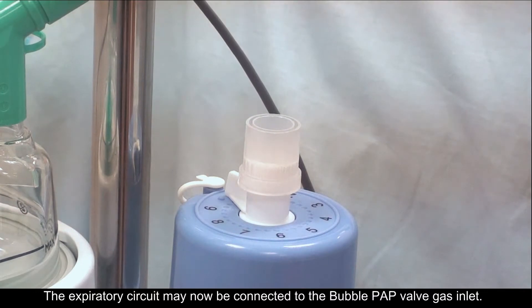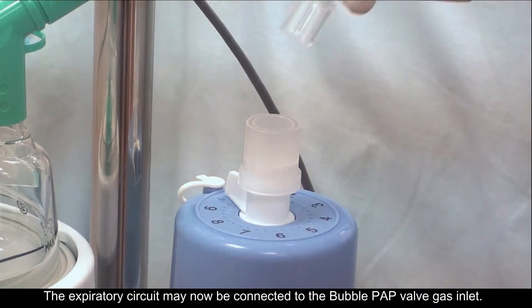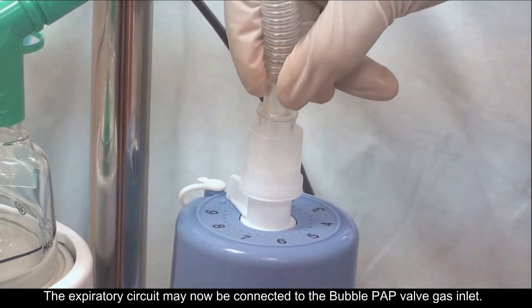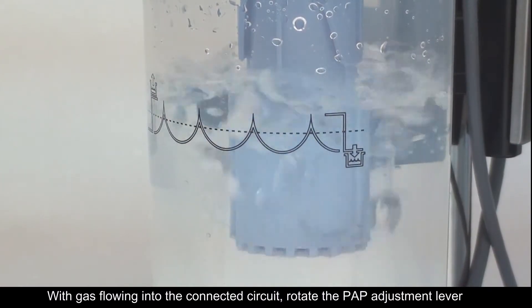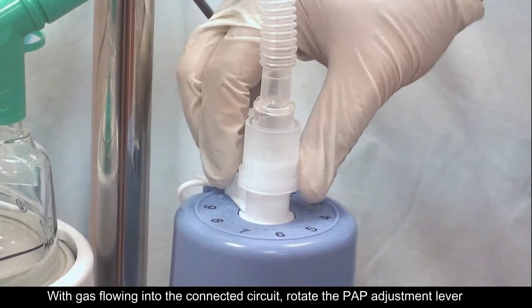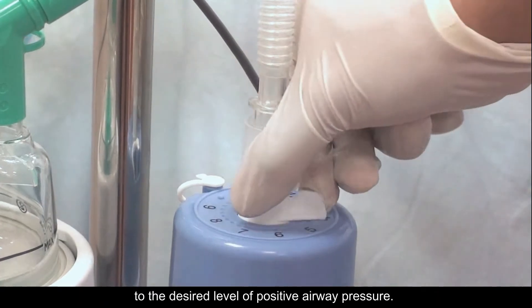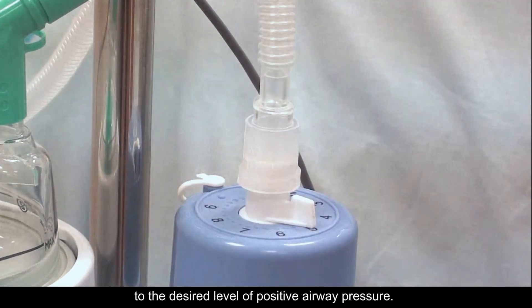The expiratory circuit may now be connected to the bubble PAP valve gas inlet. With gas flowing into the connected circuit, rotate the PAP adjustment lever to the desired level of positive airway pressure.